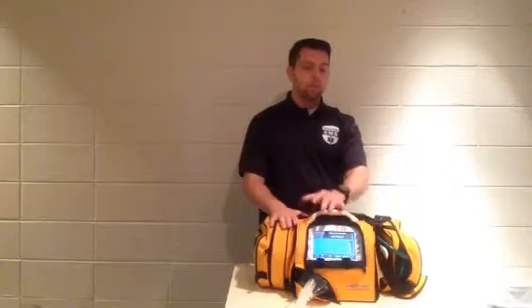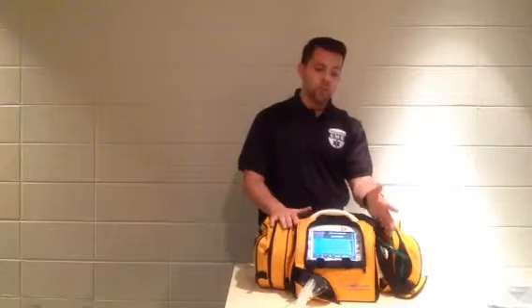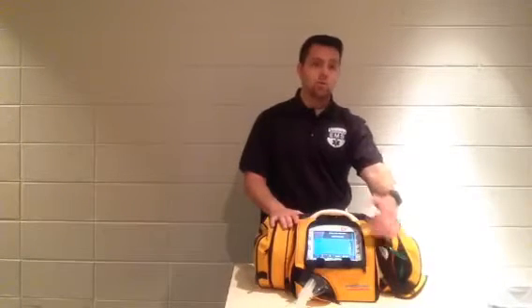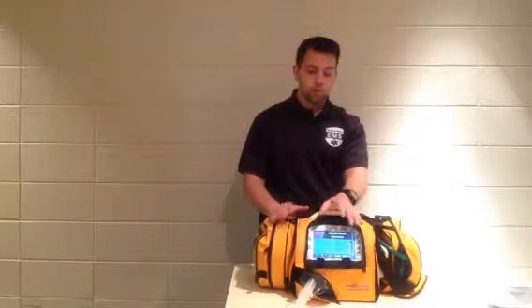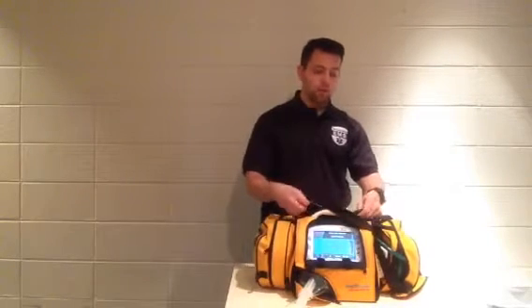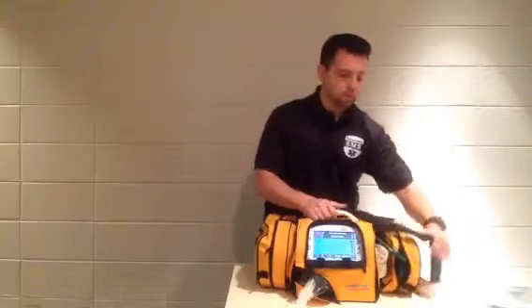Now, if the patient starts breathing on their own faster, or they start to flail and they need more FiO2, clearly that will change your oxygen calculator. So take it with a grain of salt. Always make sure that you have more than enough oxygen to complete your transport.